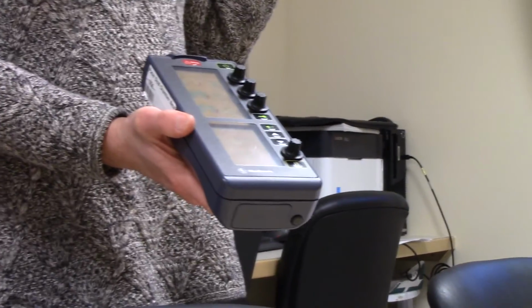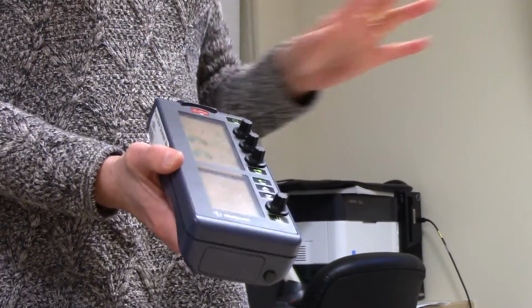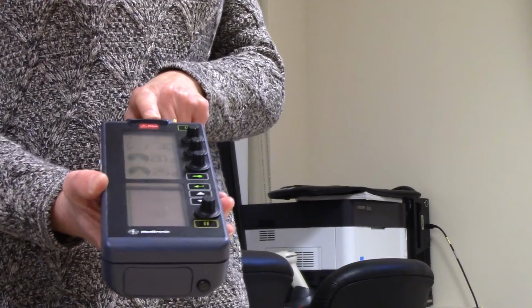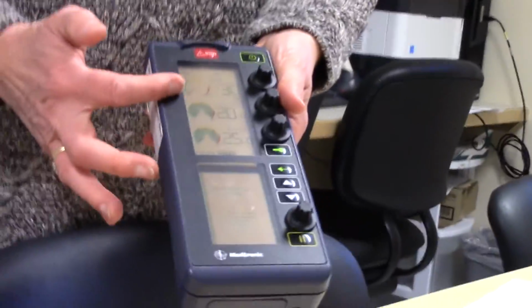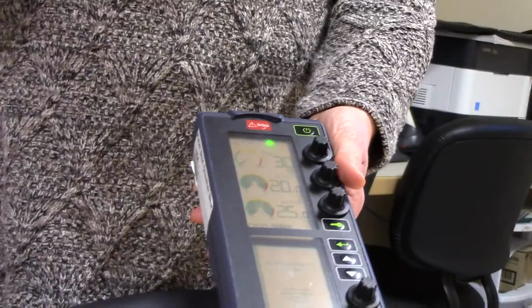Remember, our first letter is what's being paced. The O is what's being sensed. So O means it's not sensing, it's just going to pace no matter what. And since I'm not sensing anything, I'm not going to have any response to it. So notice it keeps the rate the same, but it cranks your MAs all the way up. If you were at 10, it would have gone to 25 on your ventricle.